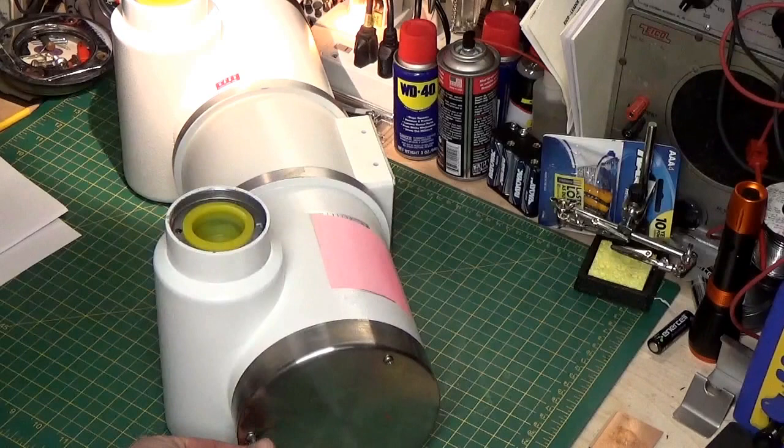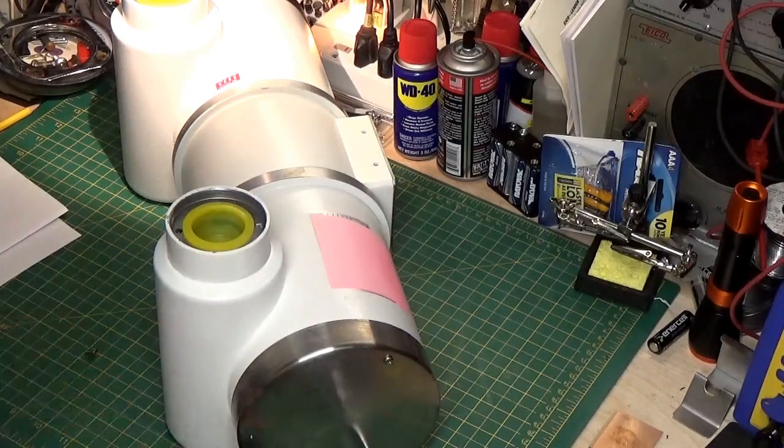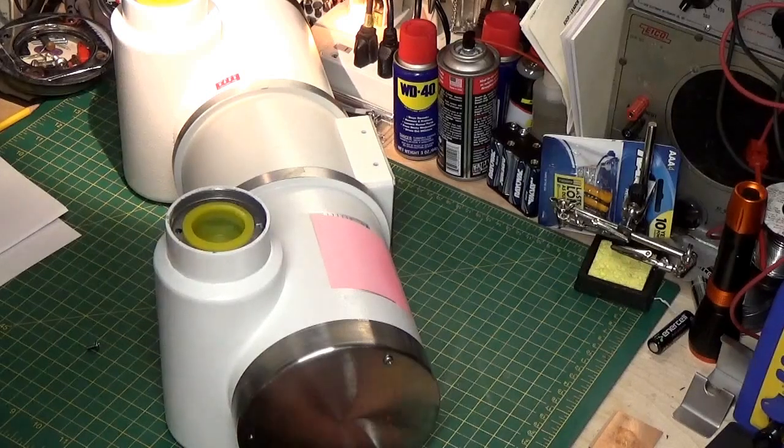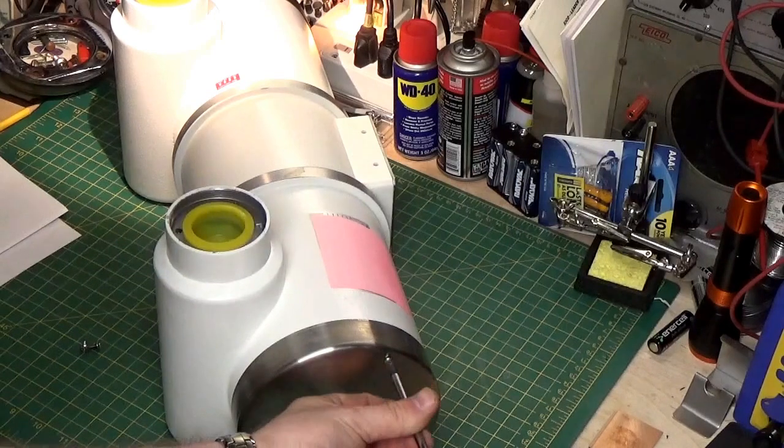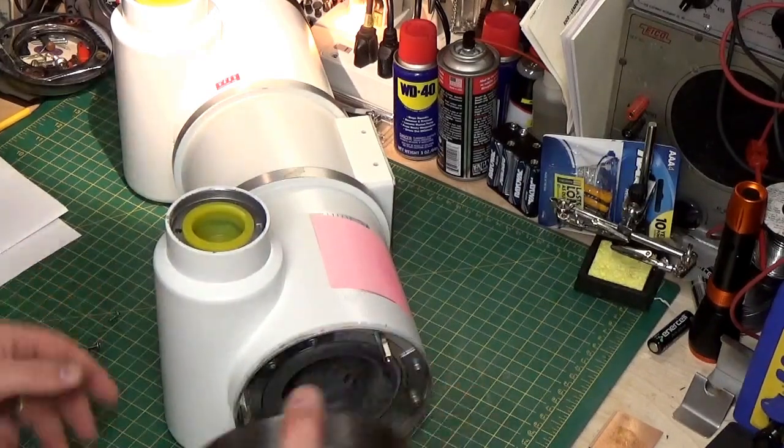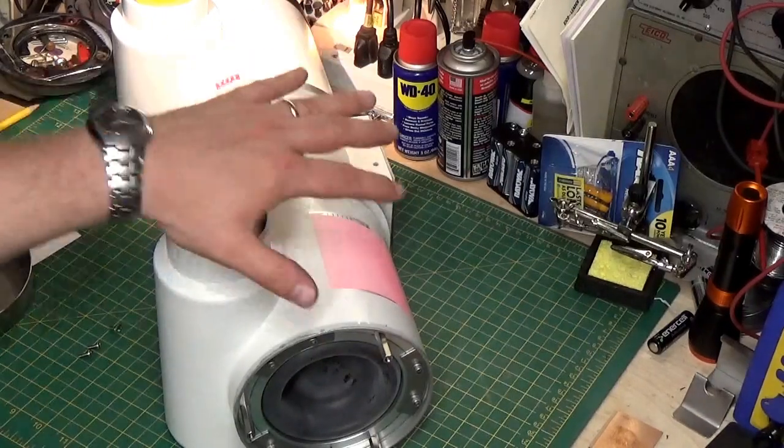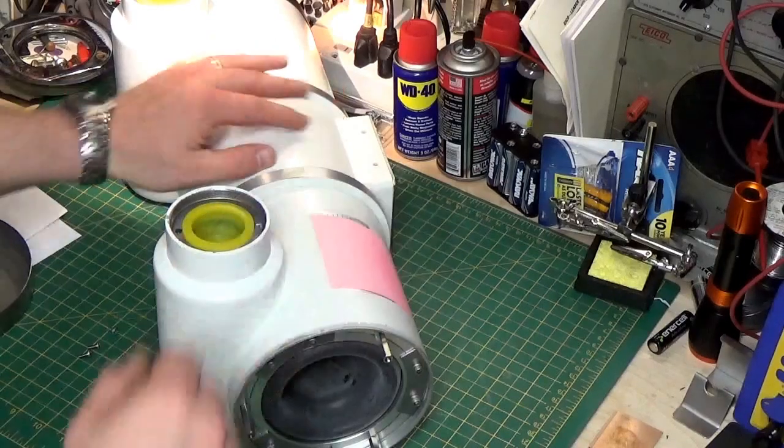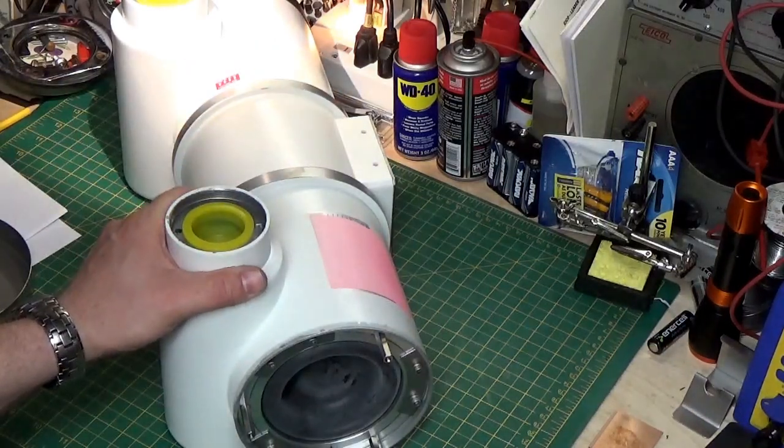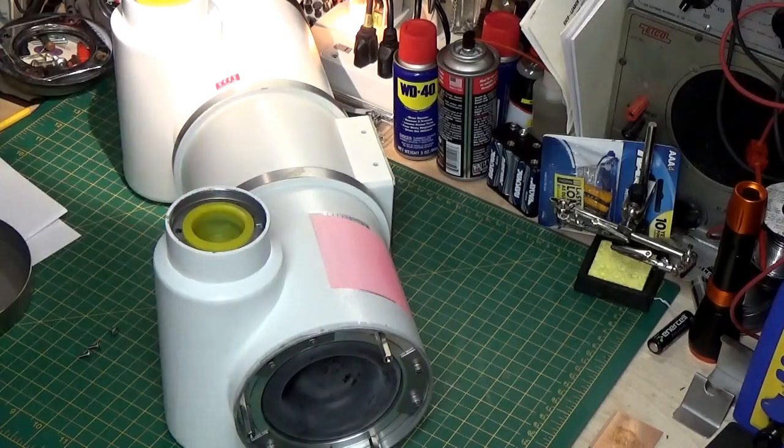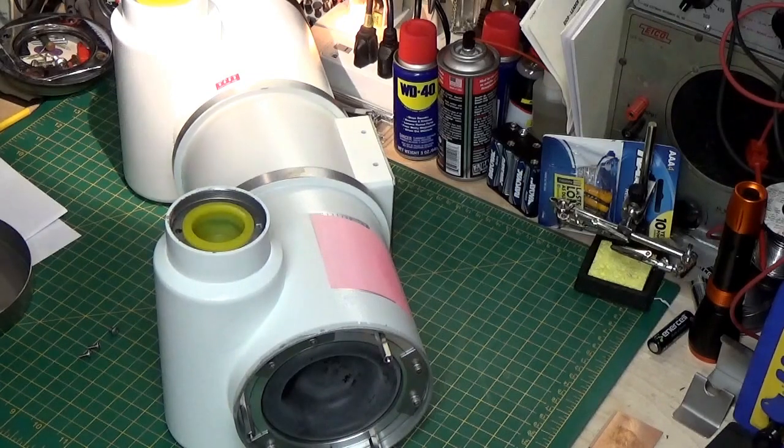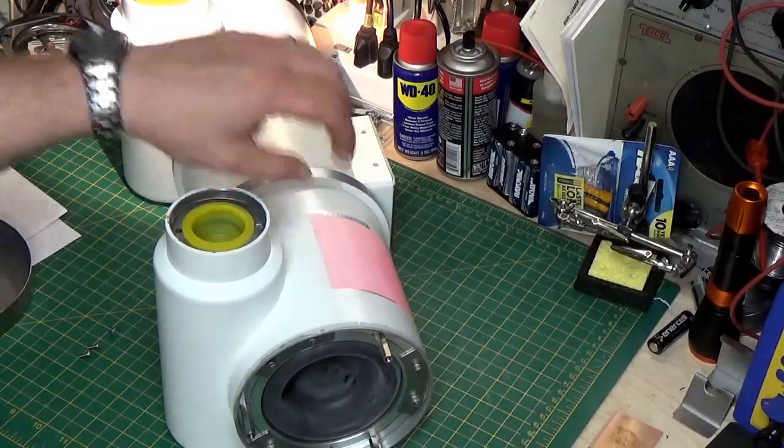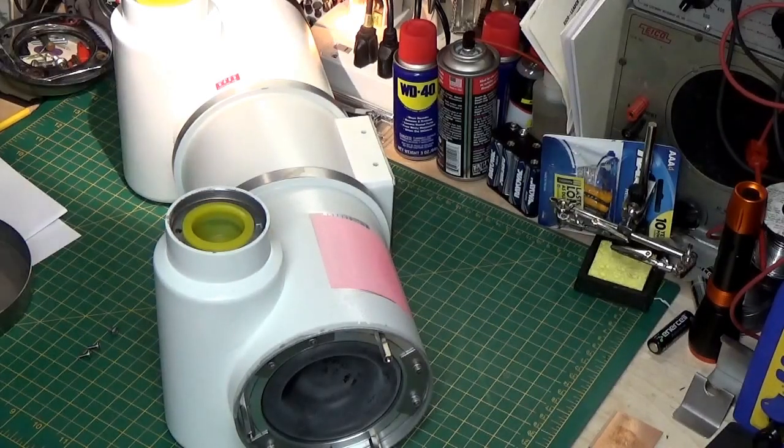So, let's look a little bit on the inside here. One side, there's a little bit to see. The other side, there's not a whole lot to see. Oh, and I forgot. Inside this housing, you have your stator, and you have your tube. But you also have, the tube is filled with oil. Dielectric oil. And, no, it is not PCB. It's actually shell diala type oil. And it's got a very high dielectric property. It helps insulate that tube, and the high voltages inside there, from the housing, so it doesn't arc. That's why it doesn't short out when you make an exposure.